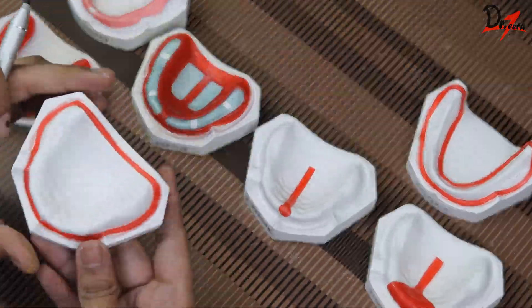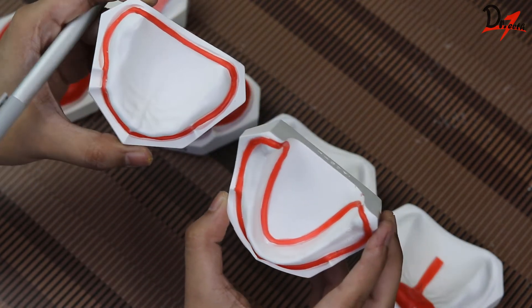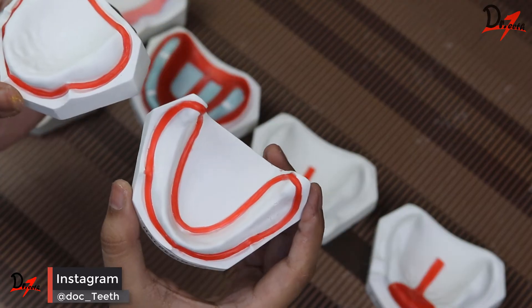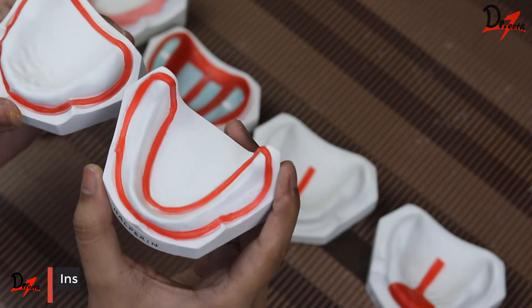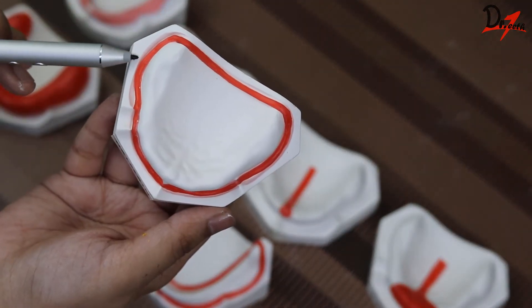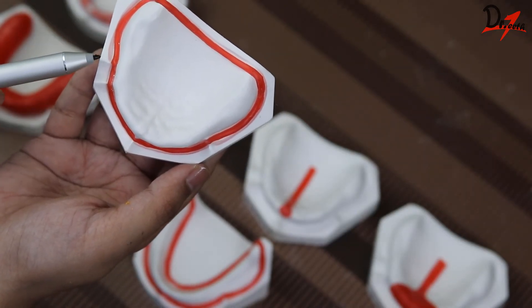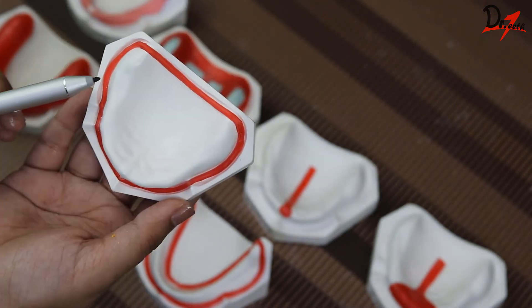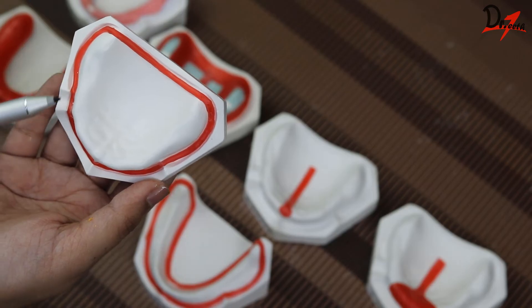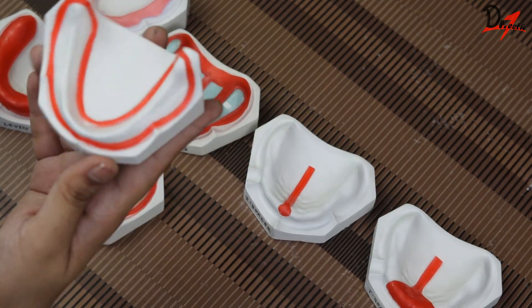Next is the Halperin design, which is a very unique design. I had posted an image on my Instagram page asking which design it was, and to my surprise I got no replies — so this is the Halperin one. Here you can see the periphery is covered and also the buccal slopes, with a thick wax covering the buccal slopes as well as the periphery. The benefit of this design is that no secondary wash impression is needed because the border-molded areas act as the final impression surface, so you can directly pour the master cast.